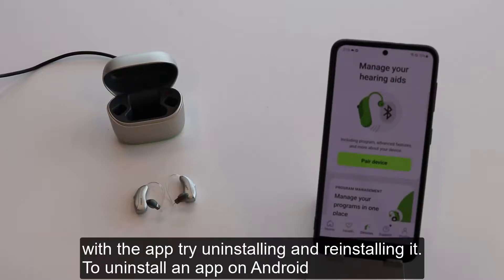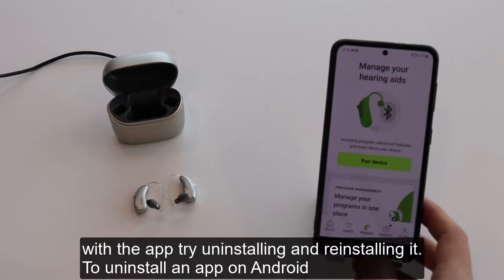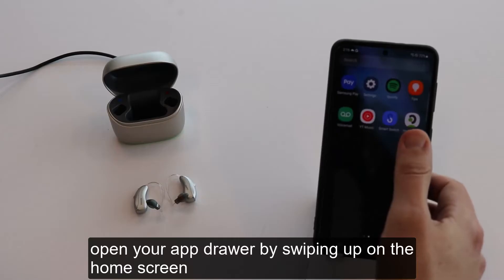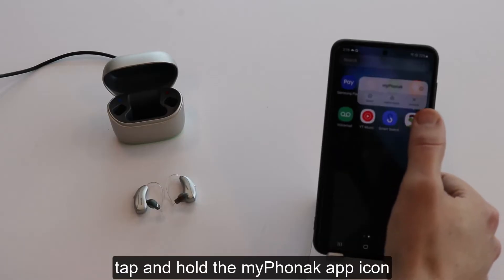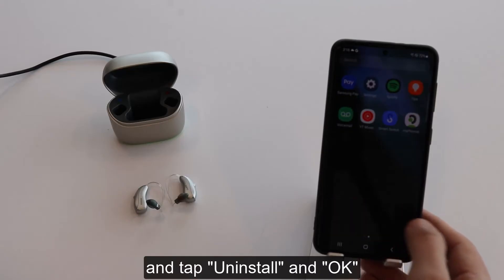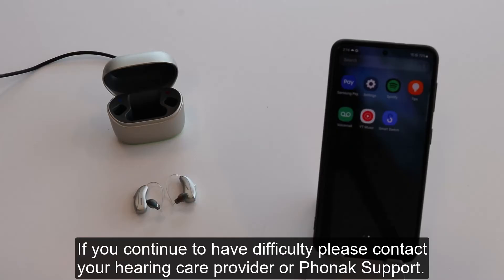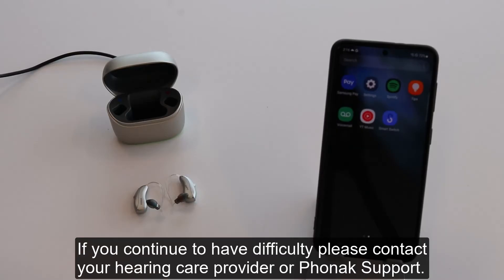If you still have trouble with the app, try uninstalling and reinstalling it. To uninstall an app on Android, open your app drawer by swiping up on the home screen. Tap and hold the My Phonak app icon, then tap Uninstall and OK. You will then need to re-download the app from the App Store. If you continue to have difficulty, please contact your hearing care provider or Phonak support.